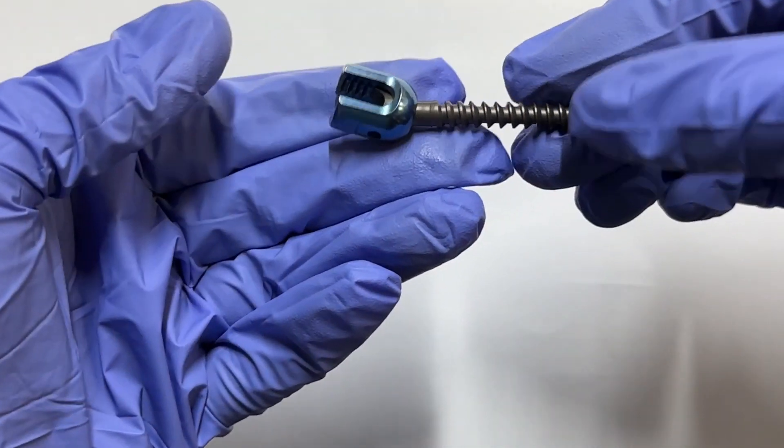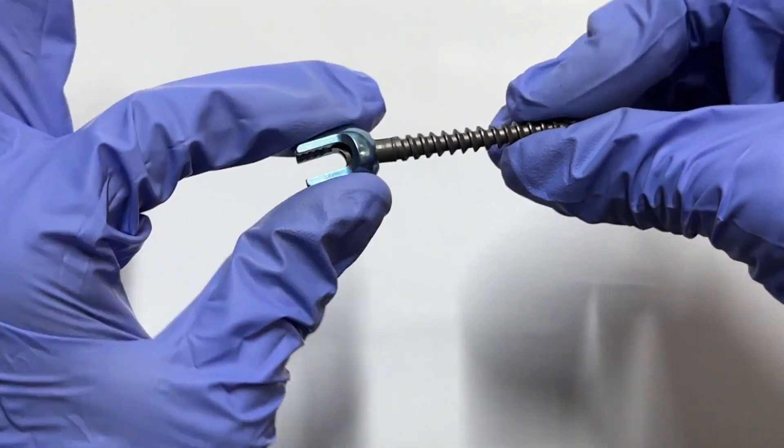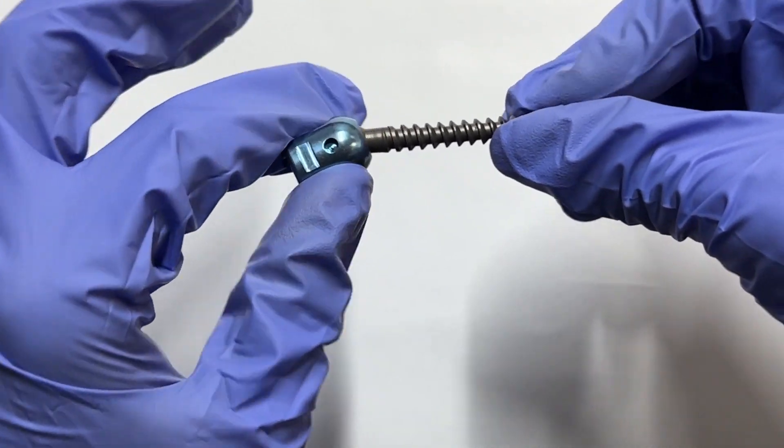The polyaxial pedicle screw, available in various lengths and widths, boasts a spherical head within a housing, granting unparalleled flexibility along different axes.